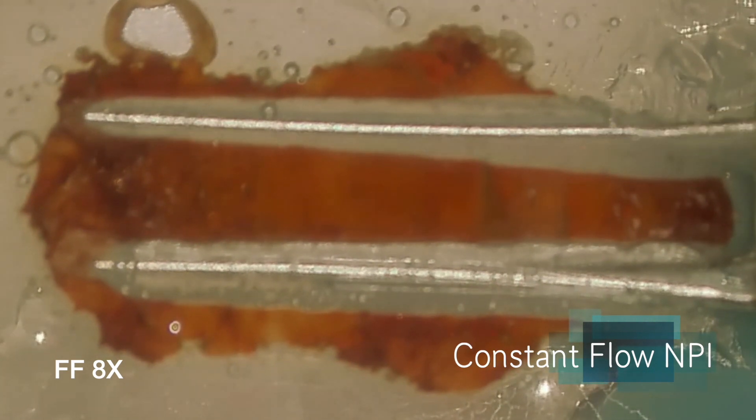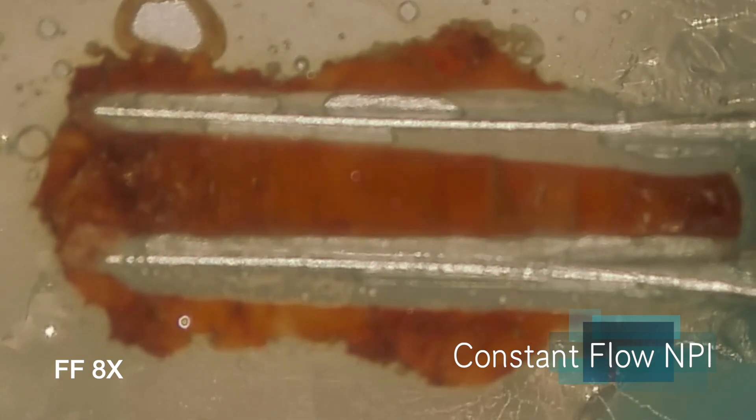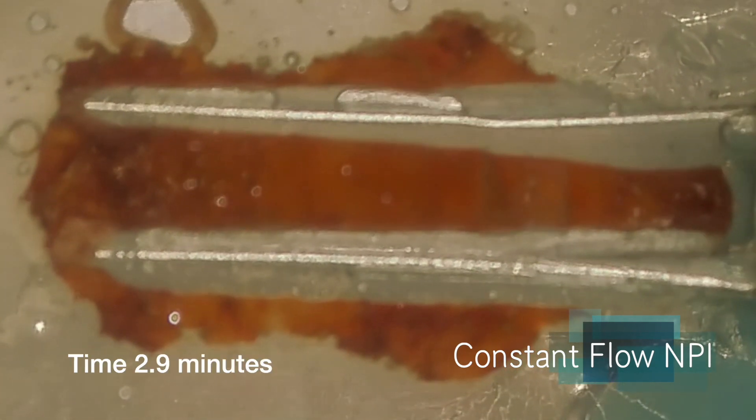Going in those little microports, I'm sorry this footage isn't very well focused. But what are we seeing here? We're seeing a fairly slow process. The Achilles heel of negative pressure irrigation has always been clogging of the micropores at the end of the needle.